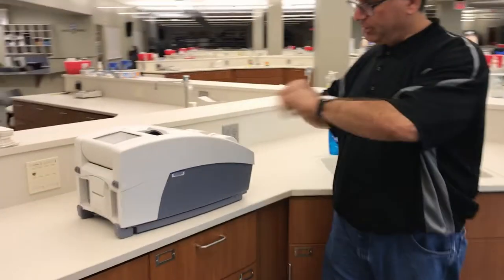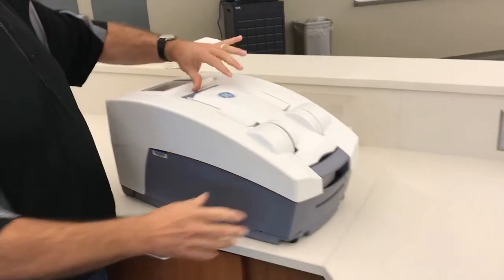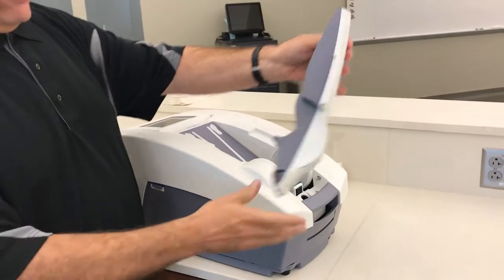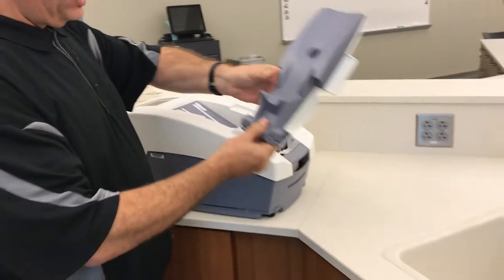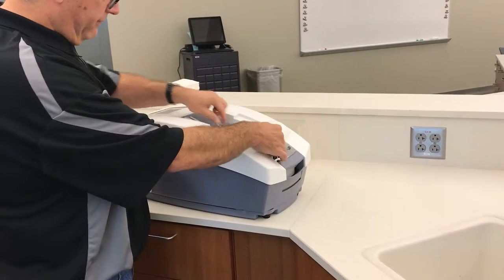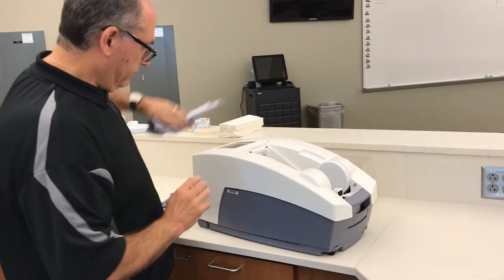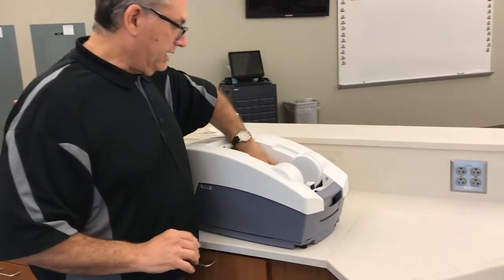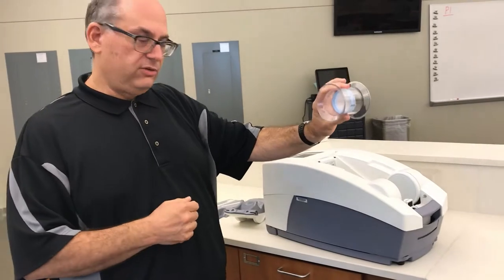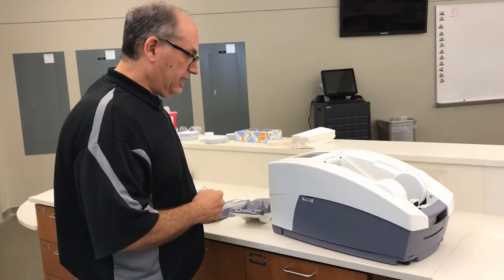Let's take the pieces out of the machine so we can fill it with water. The first thing I'm going to pull back and lift off is the calf rest — I'll set that aside. Then there's the foot rest here that comes up and can be lifted off, so I'll remove that as well. Inside there is usually what we call the phantom, used for doing the QA when you first test the machine — I'll set that to the side.